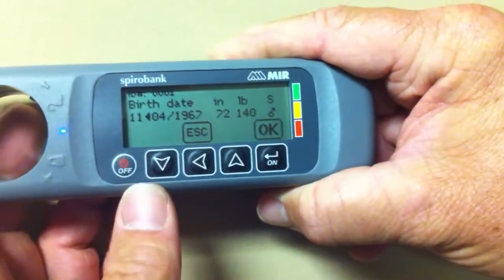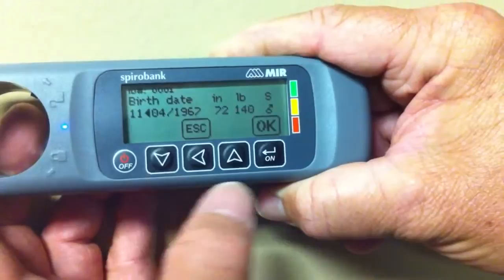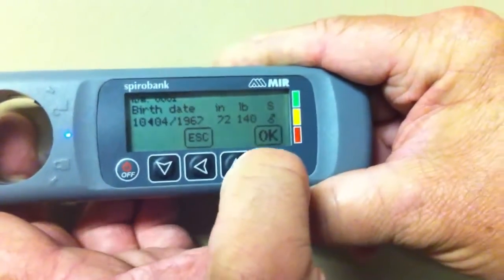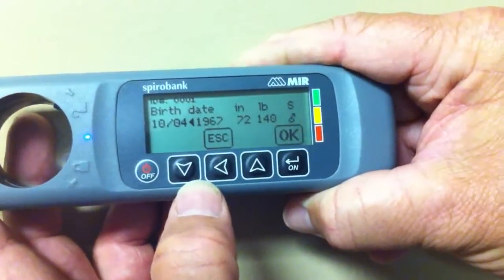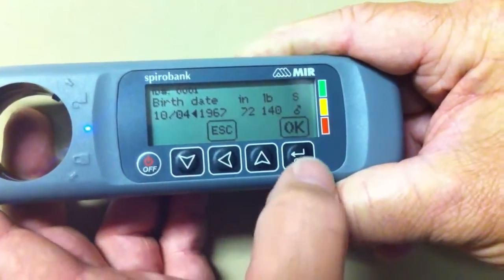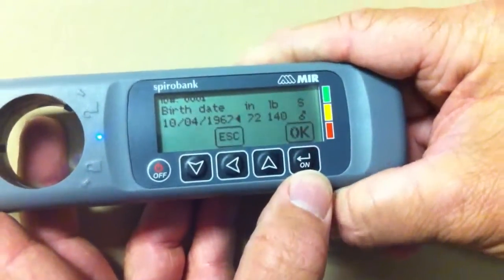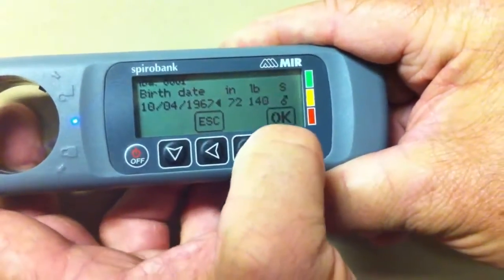You may choose the birth date of the patient — month — using the scroll up and down keys, then hit okay. Enter the date of the patient using the up and down keys, then hit okay. Enter the year of the patient's birthday using the up and down keys, then hit okay.